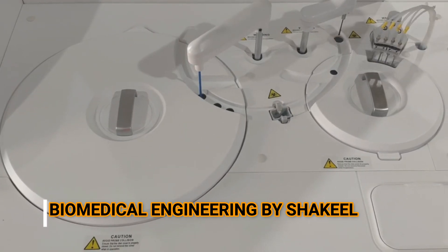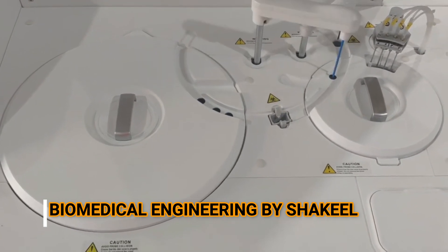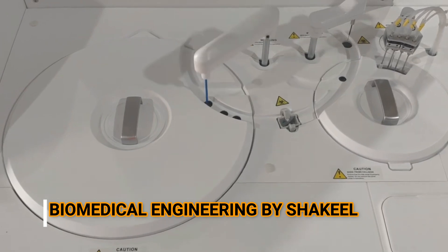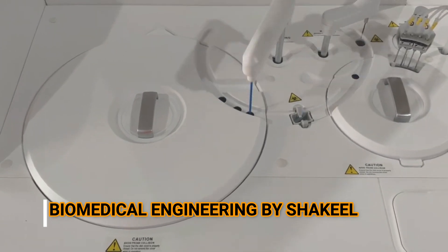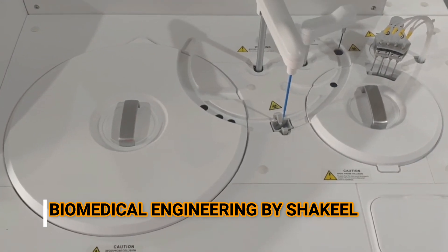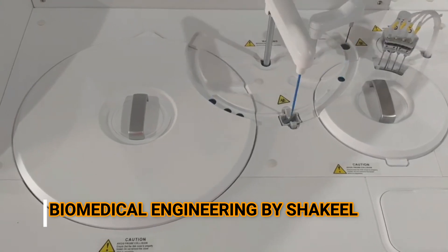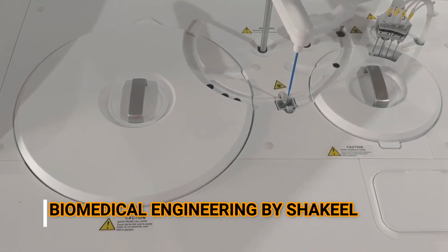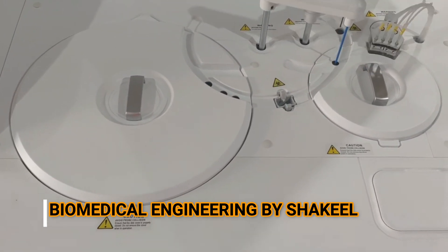Have a look at the functionality of the analyzer and how the machine works. Regarding the throughput, this machine can perform 200 tests in one hour. It has 40 positions for samples, 40 positions for reagent inner side, 40 positions for reagent outer side, and 44 reusable washable cuvettes.